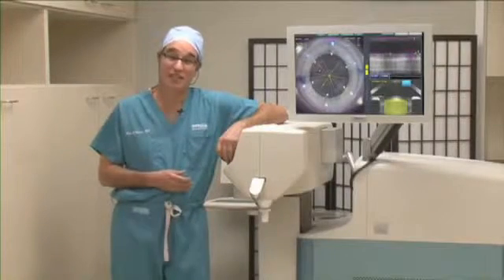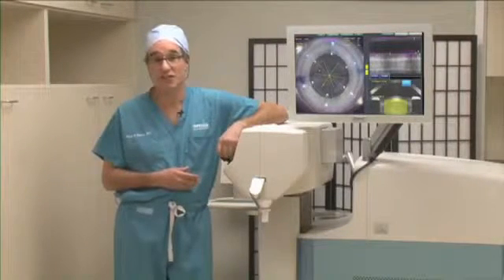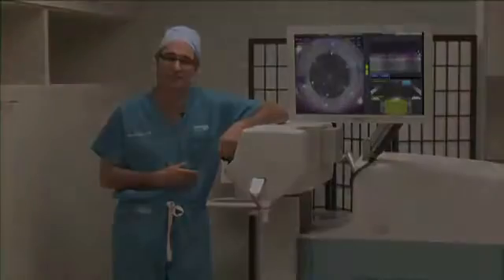But now, technology has advanced to a point that we're able to use the laser to perform many of the critical steps of your cataract surgery. I'm standing in front of our LensX femtosecond laser, and I'm proud to say we were one of the first centers in California to be selected to offer this technology to our patients.